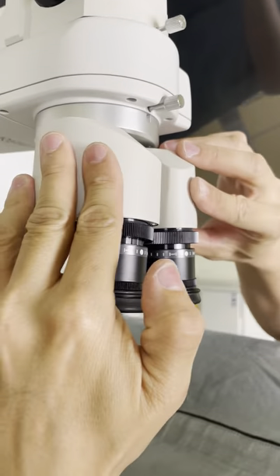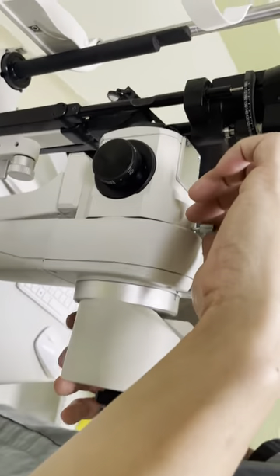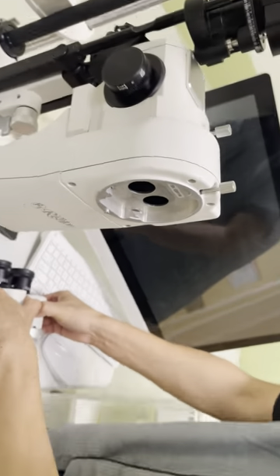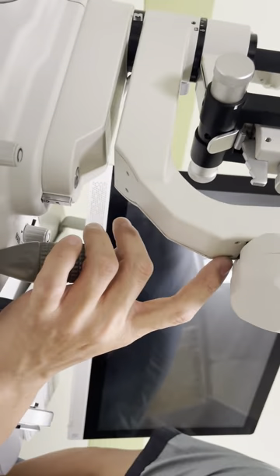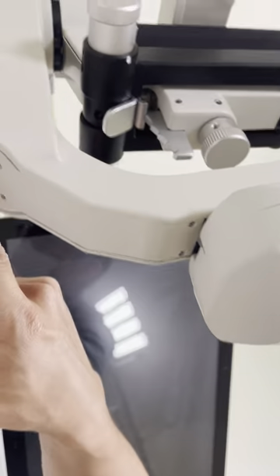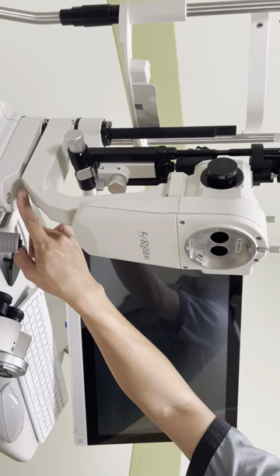Don't close it — if you close it, open it a bit and see through. This one I don't open up because of the camera. There are four screws you need to detach — one, two, three, four small Phillips screws. Then there are two connectors around here, green color cable — two connectors inside you need to detach.